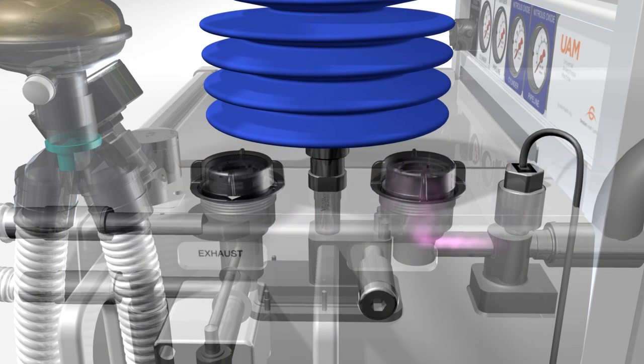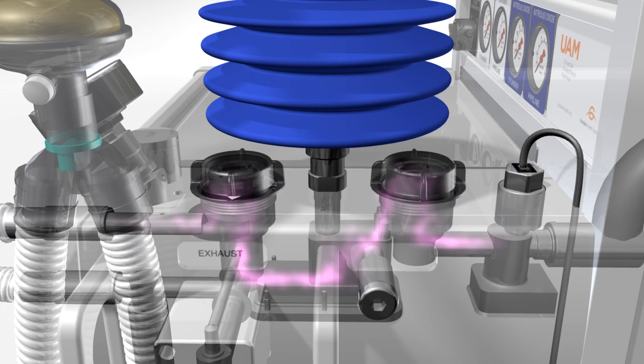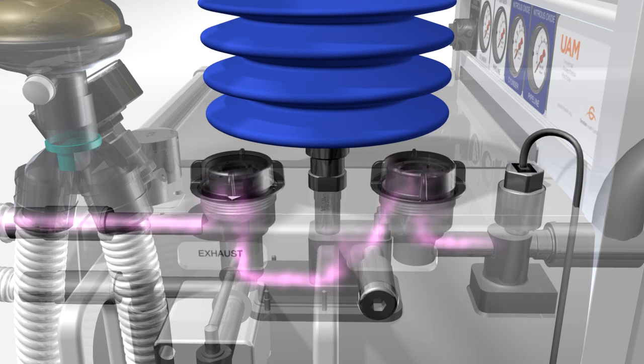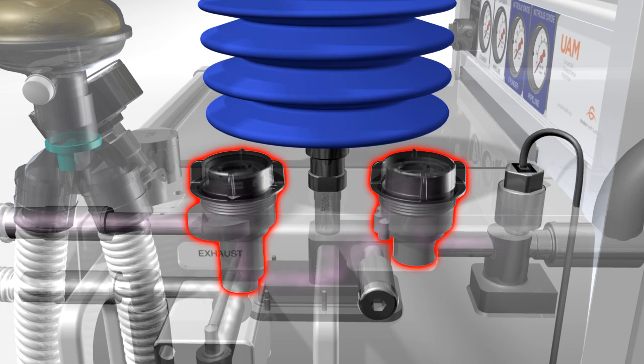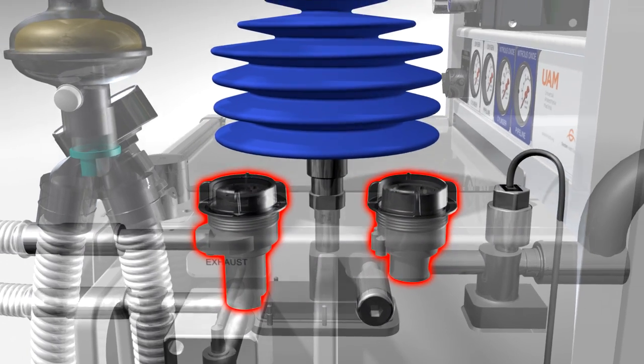As the gas continues from the oxygen sensor, it passes the first one-way valve, then the bellows chamber or ventilator, followed by the second one-way valve. During spontaneous breathing, both non-return valves open for inspiration and close during expiration.